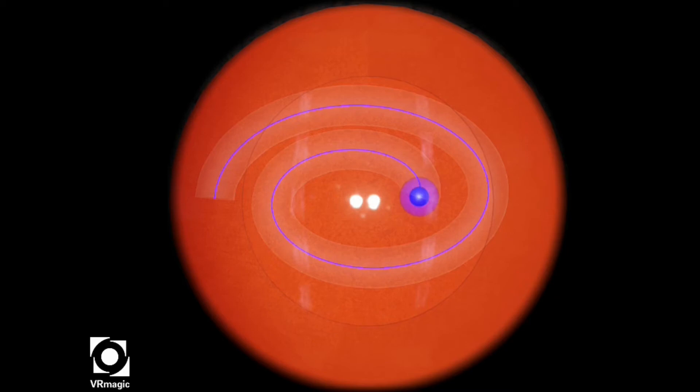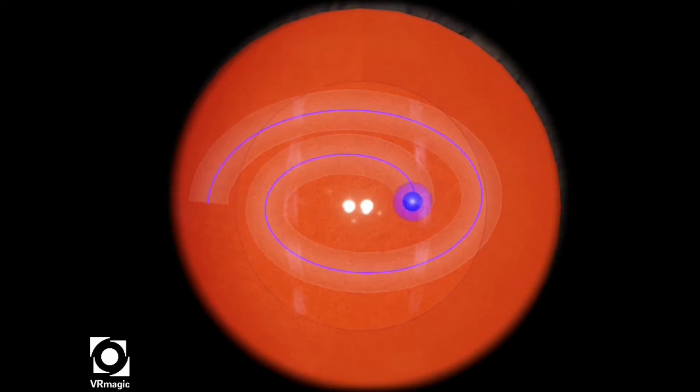In this particular task, our job is to start from the center of the spiral and follow the path until the end of the spiral.